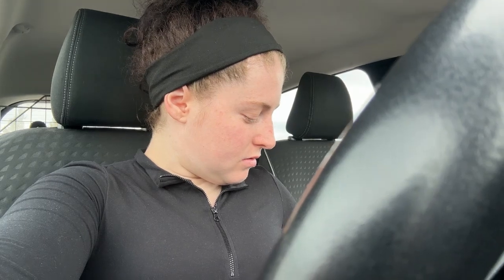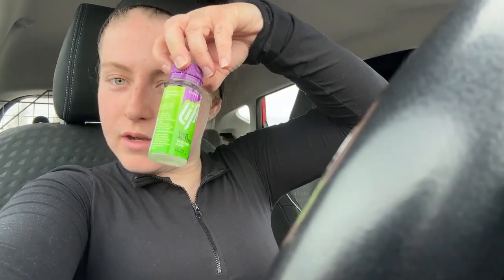I've just arrived where I'm going to run. The pump is here, blood sugar is 6 on the screen. I'm actually really low on insulin in the pump — that little vial symbol means you're in low reservoir. I didn't realize how low though. I'll be fine — I won't use 16 units in an hour. This will be my first run in months and my first ever run with a pump.